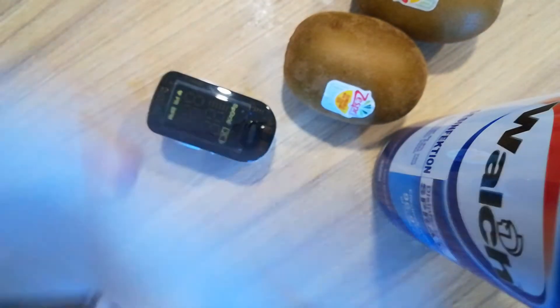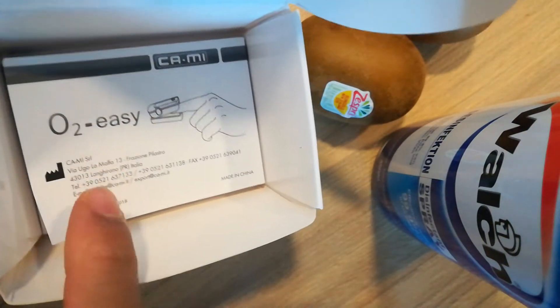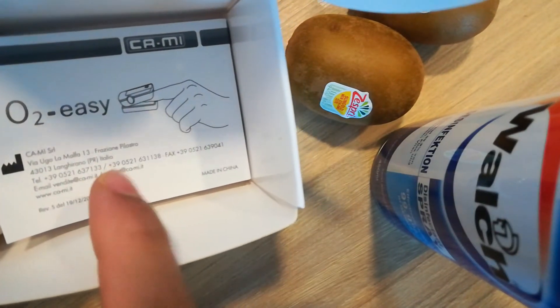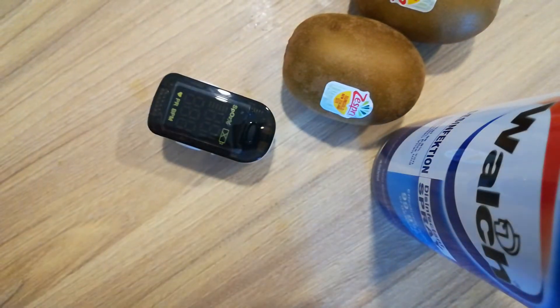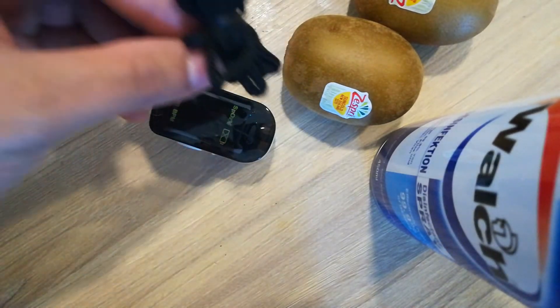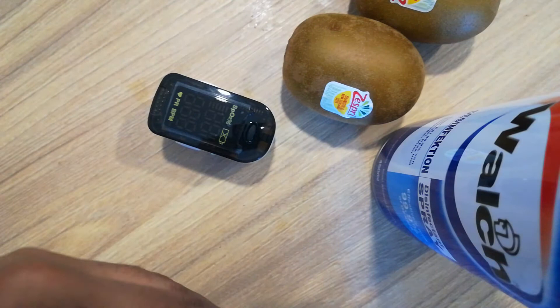You can also find one instruction book inside — how to follow the instructions. And there is one lace to hang it, so you can hang it on wherever you go.